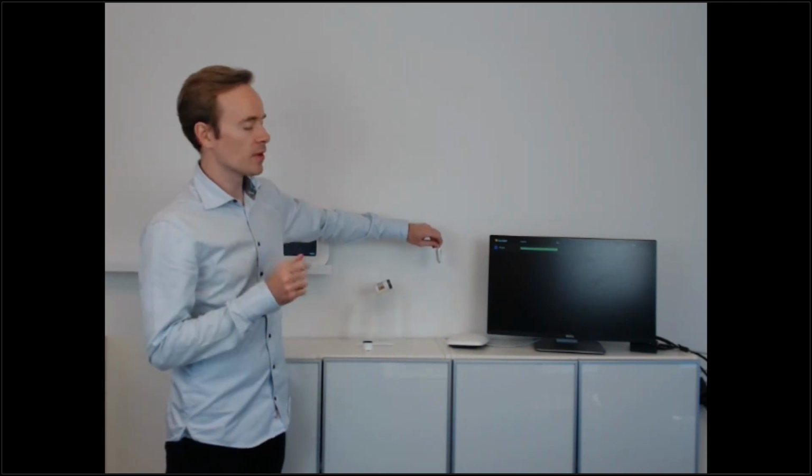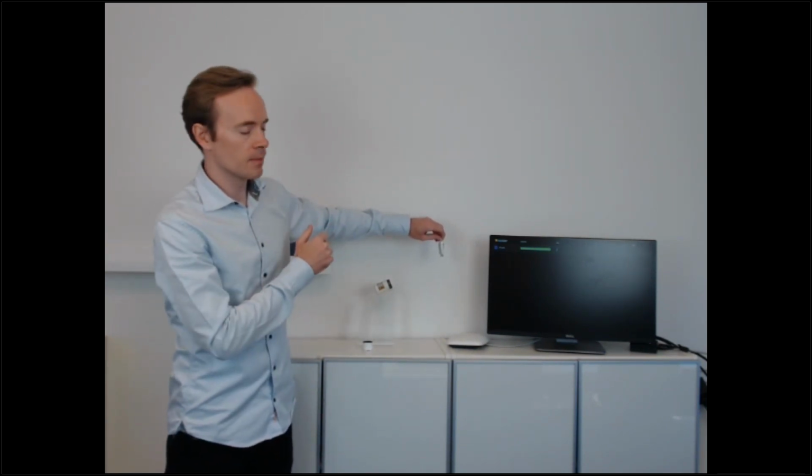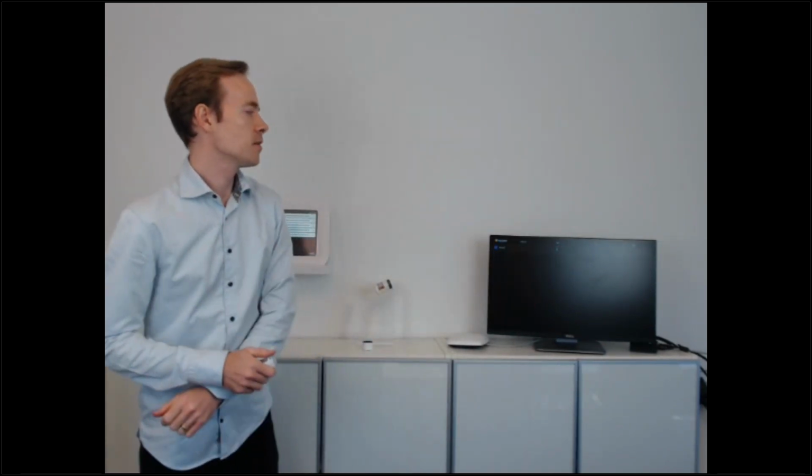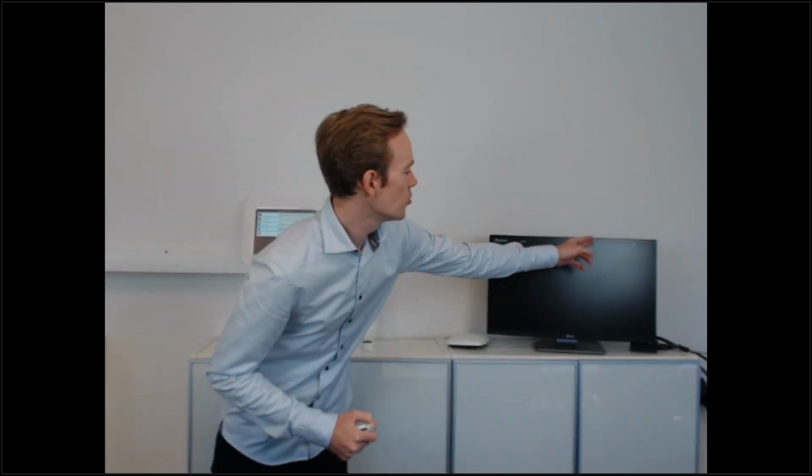And here it's important to remember that this bar has a logarithmic scale. So what you just saw was the bar going down by about 50%, but in reality that means I reduced my dose rate by 90%. It went from approximately 2 millisieverts per hour to 0.2 millisieverts per hour. And that way, I've learned a better way to protect myself. I've learned that maybe that spot isn't the best place to be. I should rather stay over here, a bit further away from the radiation.